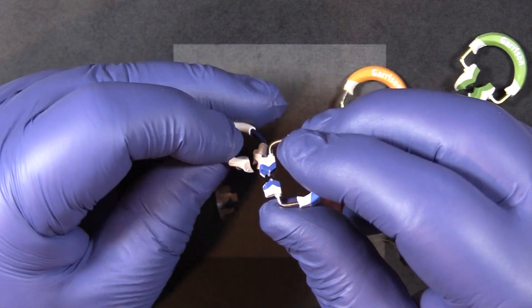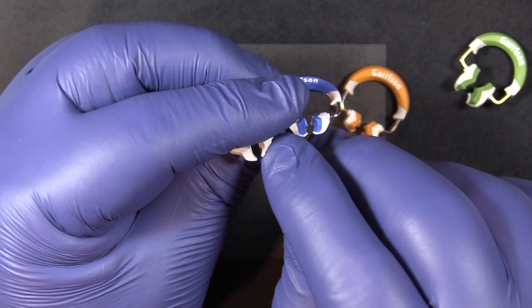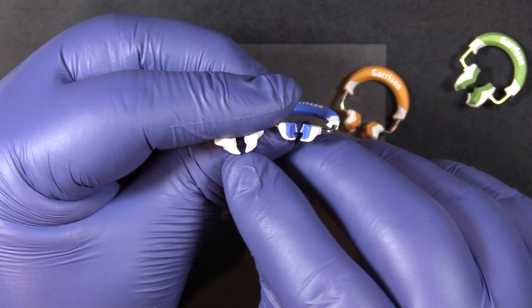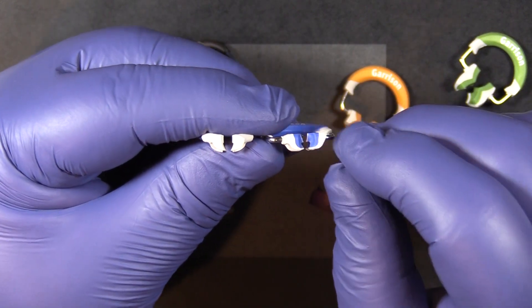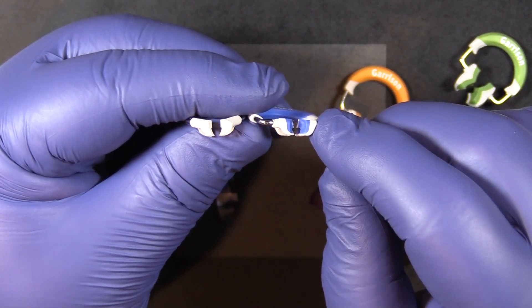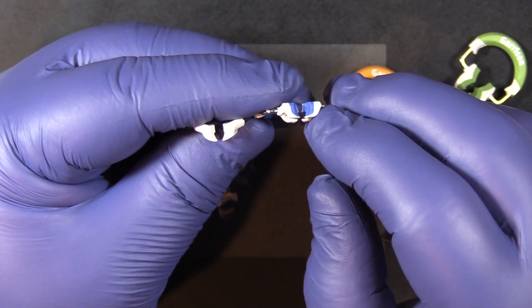Now the tips are quite a bit different. The Nitin tip is a hard plastic throughout the entire tip. The 3D Fusion has the soft silicone. The soft silicone does allow the ring to adapt to the tooth much more intimately, helping to reduce flash.